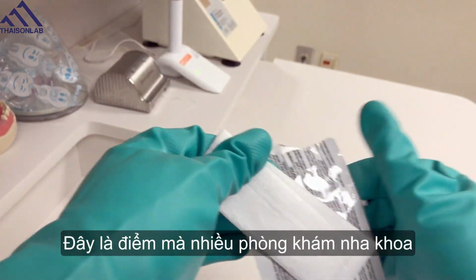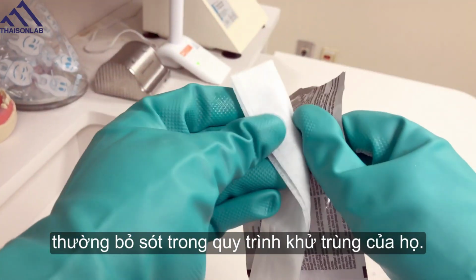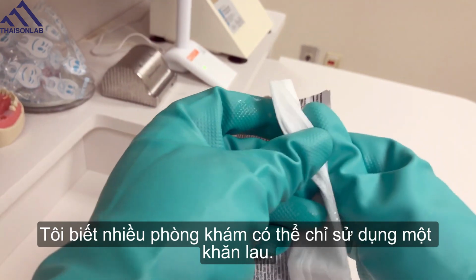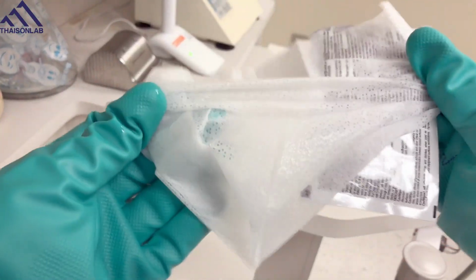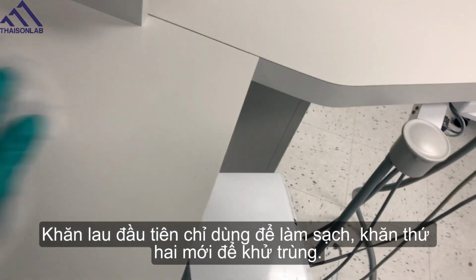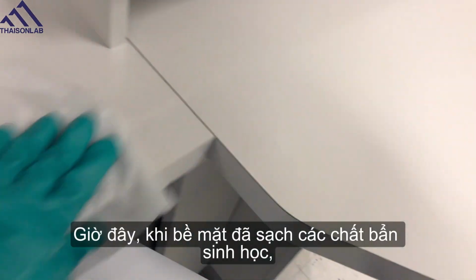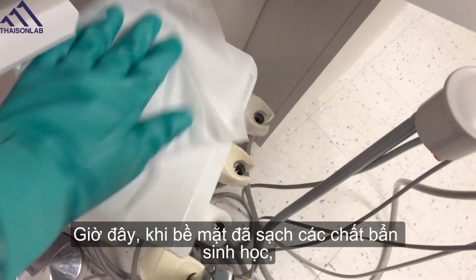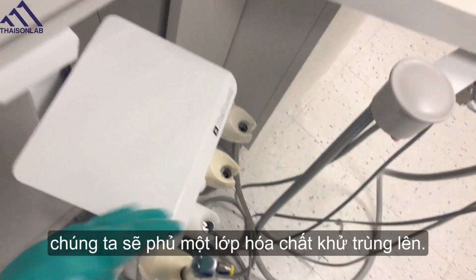This is where a lot of dental offices fall behind on their disinfection procedures. I know a lot of offices may only use one towelette. The first towelette only cleans. The second towelette, now that the surface is free of bioburden, will lay down a layer of disinfectant chemicals.